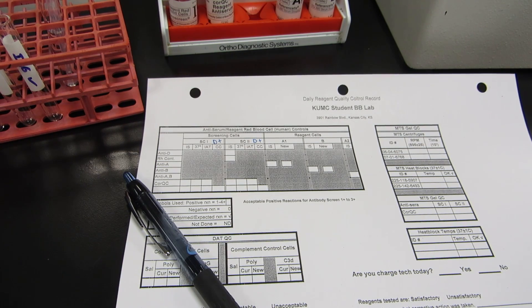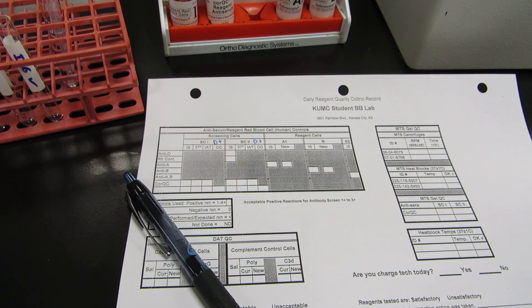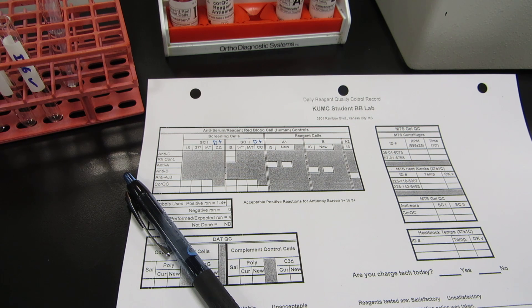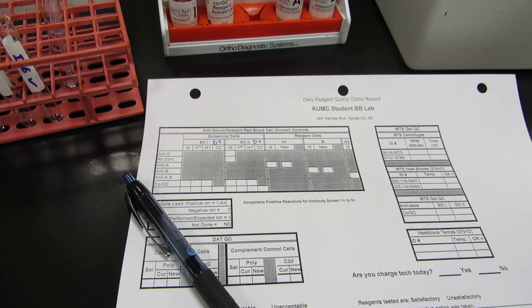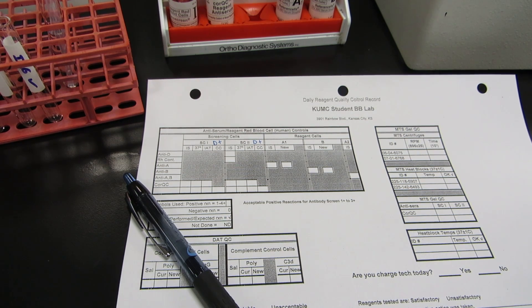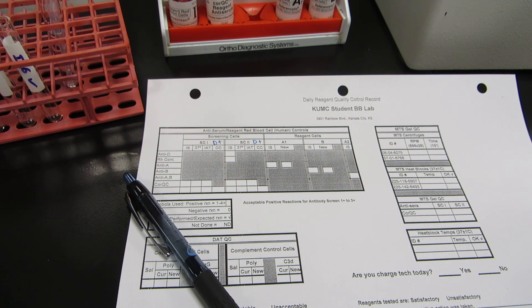Hi everyone, welcome to your QC video. I am going to demonstrate for you today how to do basic QC in the student blood bank lab. I'm not going to be able to show you all the QC that we do in this class, but hopefully after you use the form a few times and go through the procedures, you'll be able to tell how you need to do QC that is not demonstrated here.